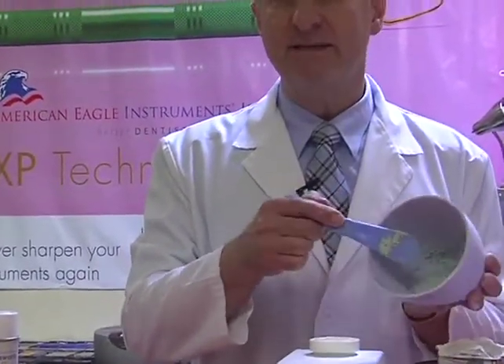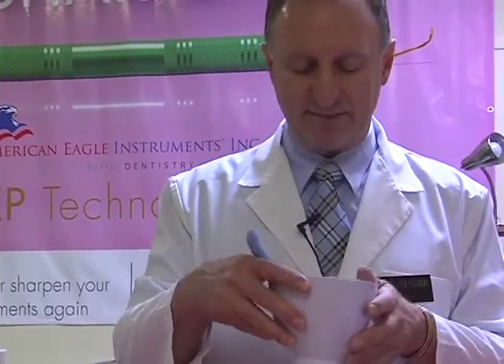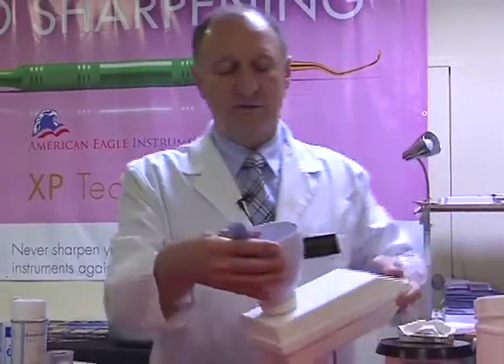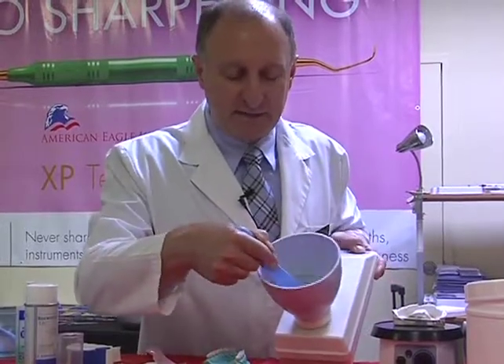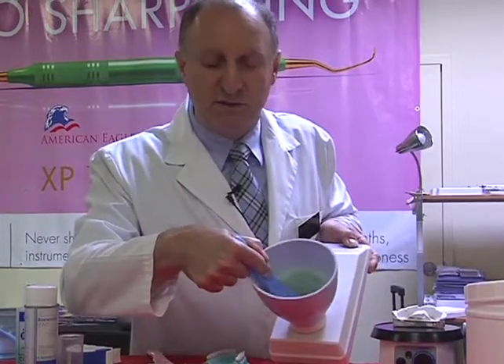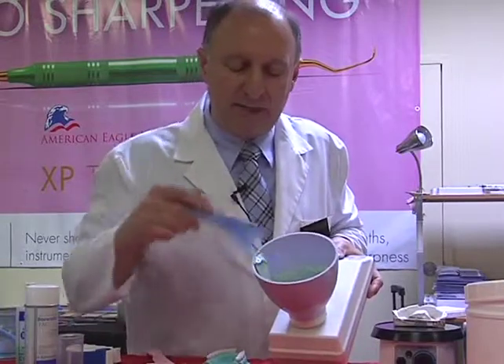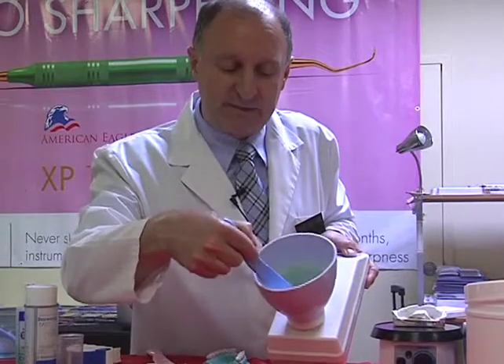After we've combined these two together, I'm going to put this back onto the alginator, and then I'll turn this around towards you. I'll do the same procedure that I did previously. So lightly slide this down 3 times. 1, 2, and 3 times. Just making sure that everything was picked up and dropped to the bottom, and then the same thing on the high speed, the same procedure.